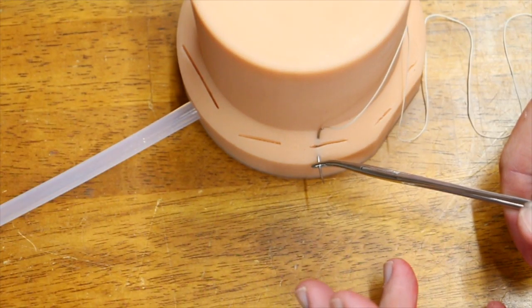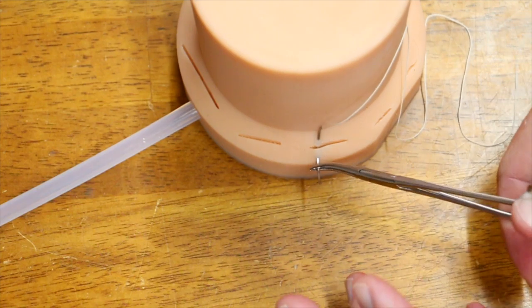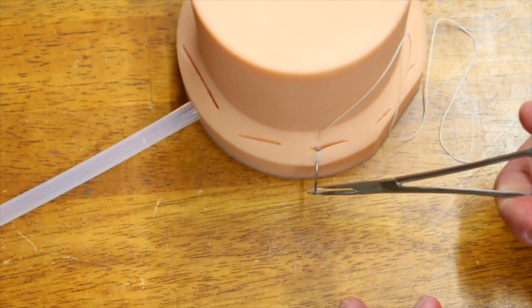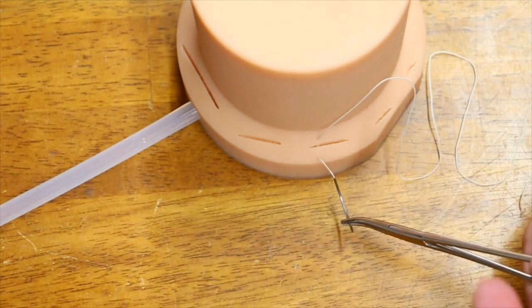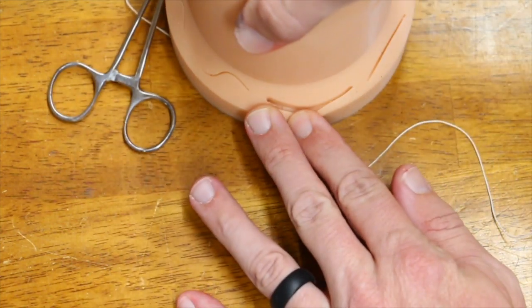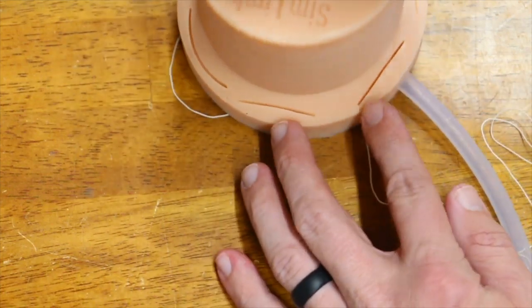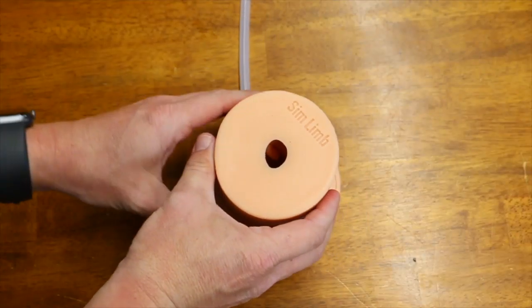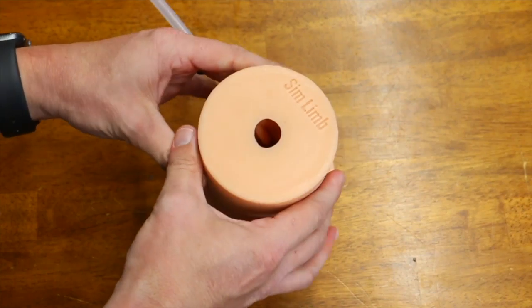So the area I do need some more training in is suturing. I know just enough to be dangerous in this department. So I think the simulator is going to give me some practice with that as well. You have lots of different gashes and lacerations that you can work on practicing and suturing up. And I've been cleaning up with regular warm water and it still looks great.